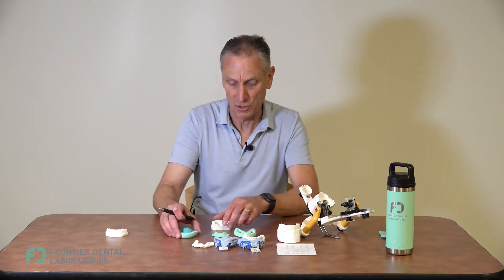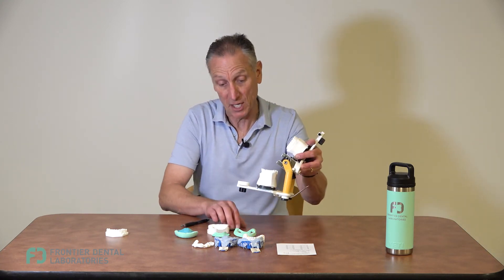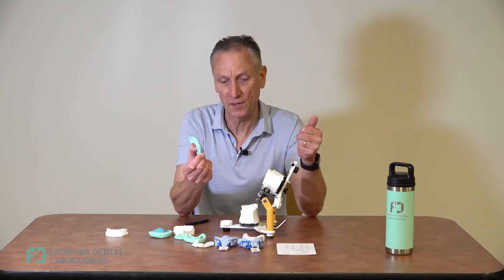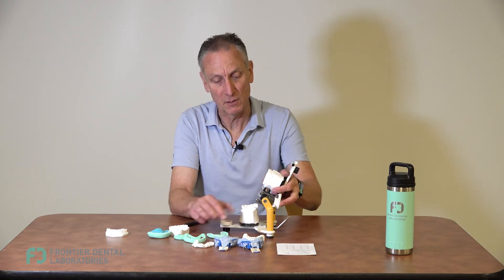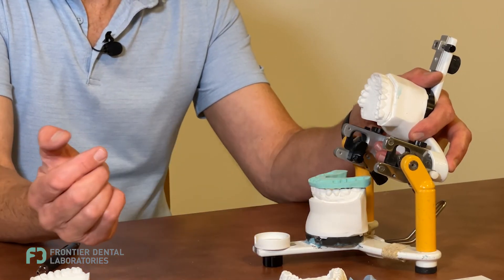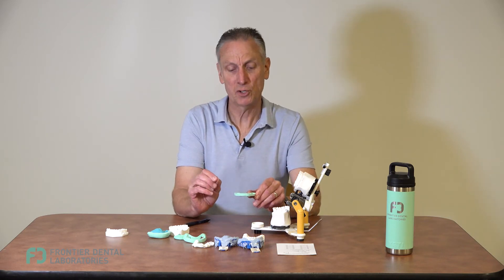These two tools and the temporary matrix are the most important tools you'll have from the diagnostic. Now, in cases where there's a bite opening — not this particular case, but for illustration — what you'll receive is a horseshoe putty bite. If you provide us with an open-bite vertical, a jig, a Dawson programmed centric relation bite, or similar, we'll mount that to the CR bite. We can open the bite on the articulator, set the pin, and make you a full-arch putty bite.